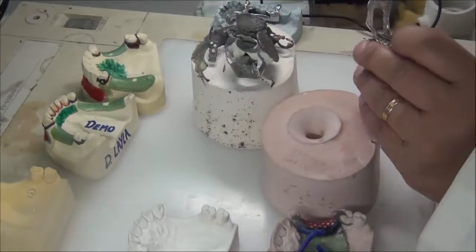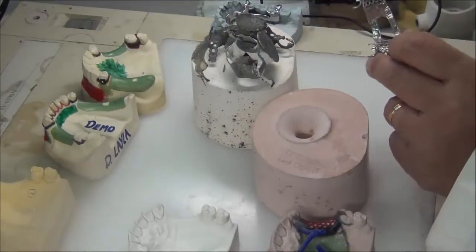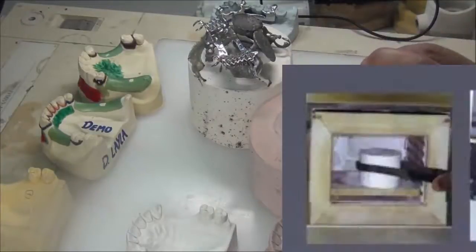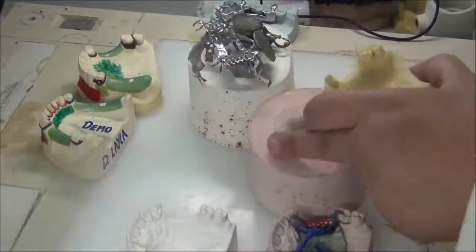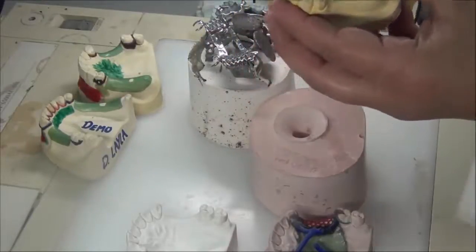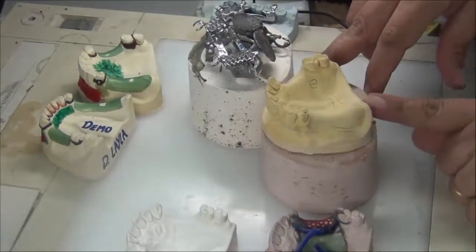This metal is then ready for the metal try-in in clinic number three. Today we concentrate on the first step when constructing metal. To construct and shape this metal, we heat it under very high temperature — for chrome cobalt, more than 1000 degrees — to melt the metal down and let it flow into the investments. But can our secondary cast stone material withstand these high temperatures?